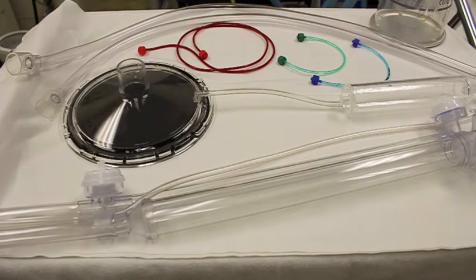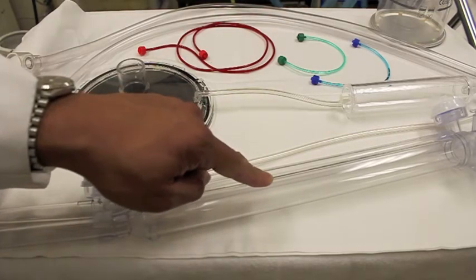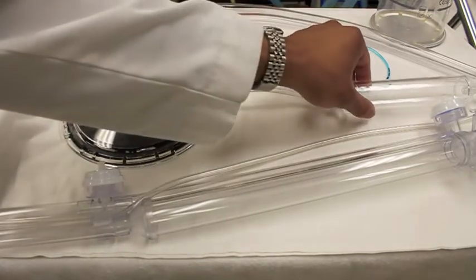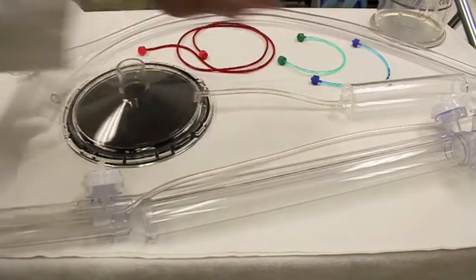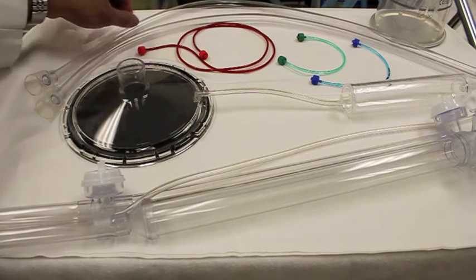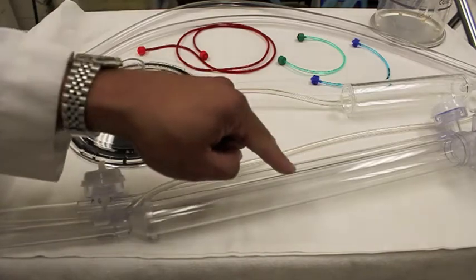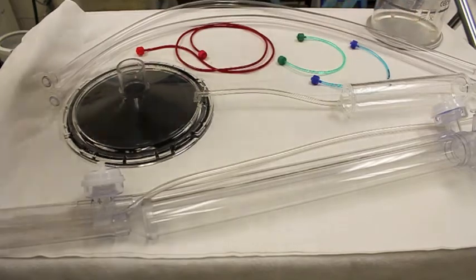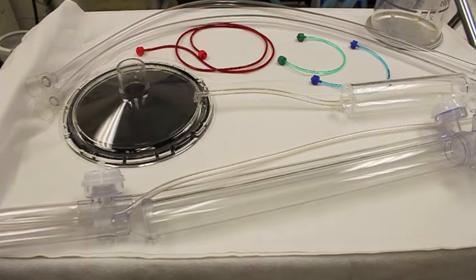Okay, before actually connecting our circuit to the oscillator, let's talk about the components that we will connect. First off, this is our rigid circuit that will connect to the oscillator and will connect to our patient. This is the diaphragm, and this is a cylinder canister that basically collects the condensation from the ventilation. Here are our flexible tubings that connect from the oscillator to the humidifier, and from the humidifier to the rigid circuit. And here of course is our cascade top for our heated humidifier. And again, these are just our pressure lines and our dump lines and our limit lines as well.